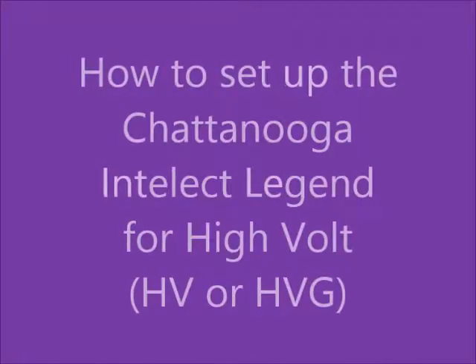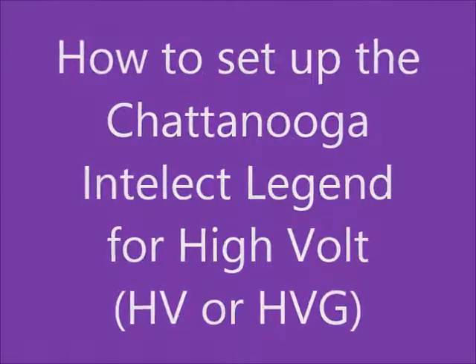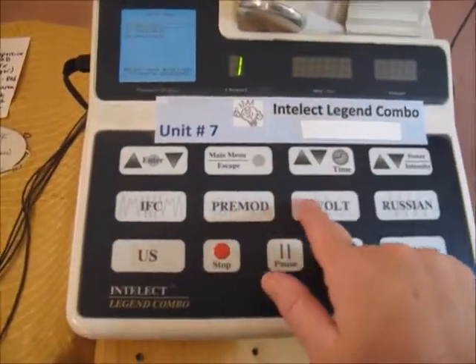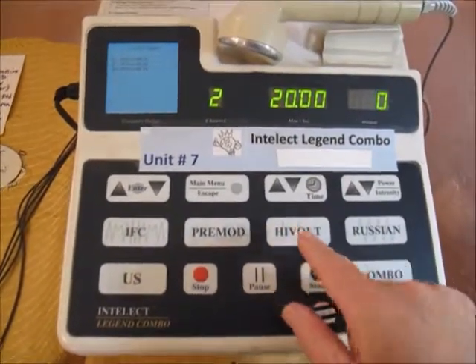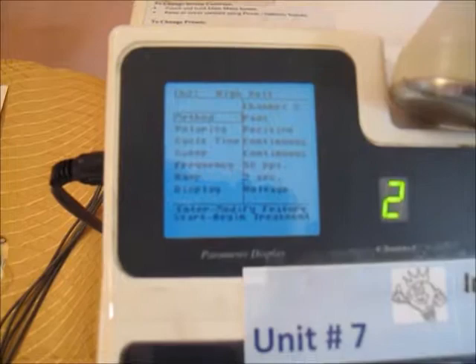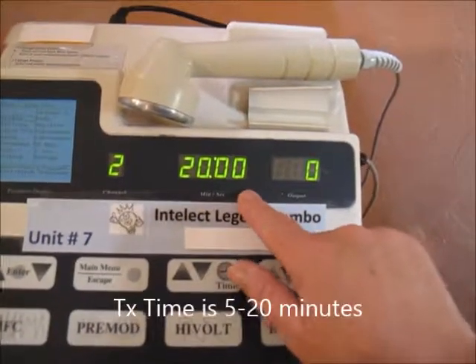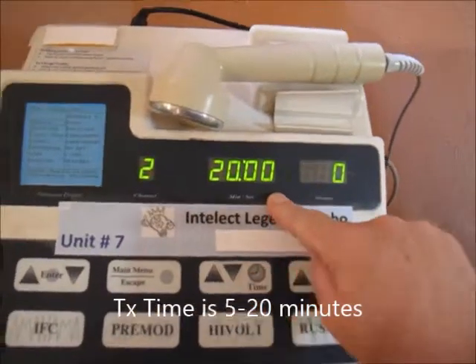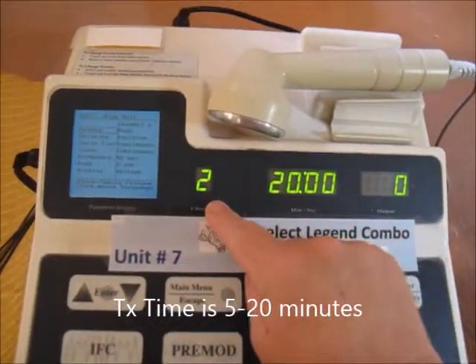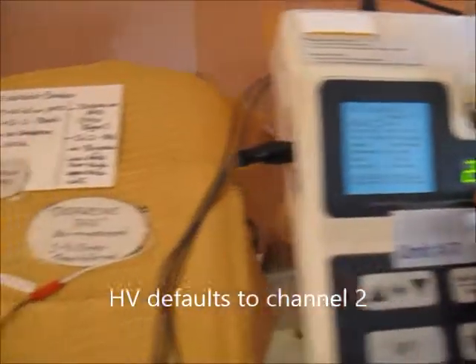How to set up the Chattanooga Intellect Legend for a HiVolt treatment. Choose HiVolt, click, look over here at the screen, and these are the things we're going to be changing. By the way, the default treatment time is 20 minutes. Treatment time for HiVolt can be anywhere from 5 to 20 minutes. It automatically defaults to channel number 2, which is going to be important in how we set up our pads.